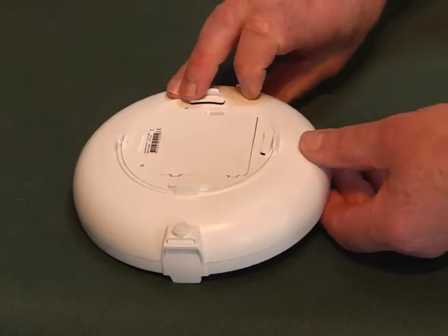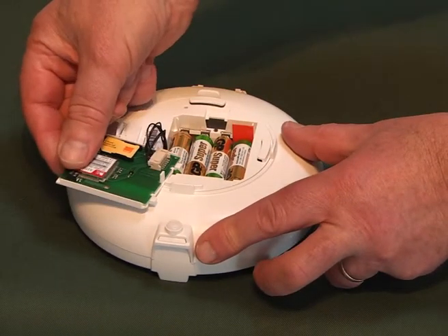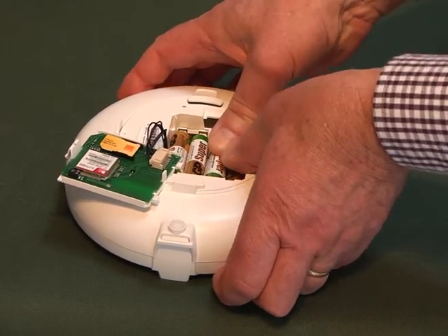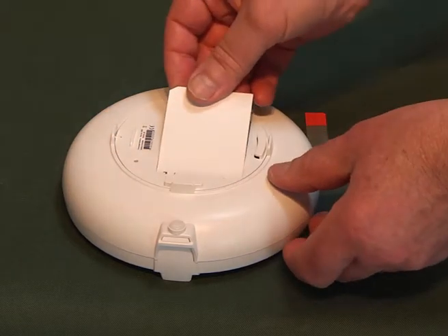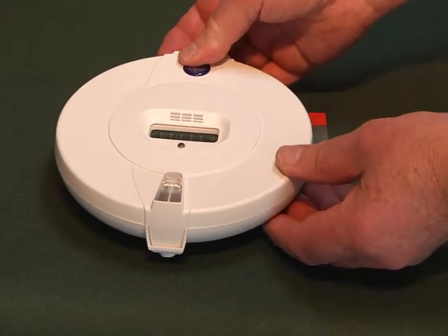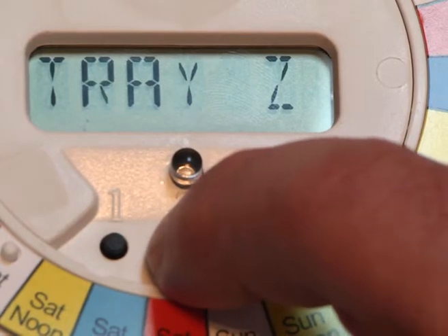Open the battery case cover and remove the battery isolating strip from the dispenser. Replace the battery case cover and, if required, secure with the screw provided. Open the dispenser lid. The LCD will display a time. To download the settings, press button 2 for 2 seconds.